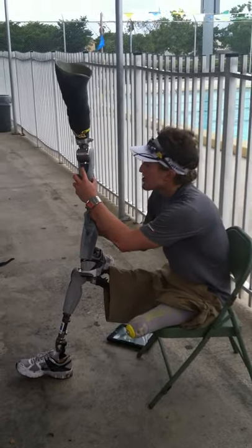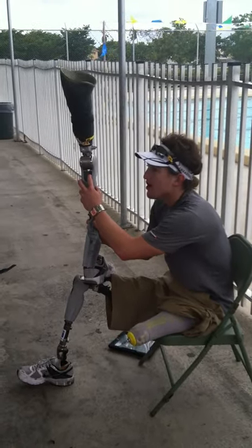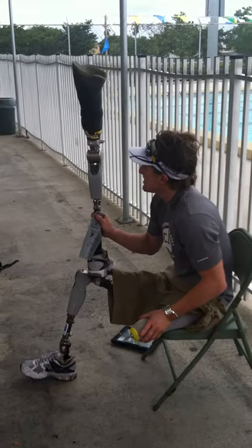You can see there's an on-off switch — that's where I plug it into the wall. I plug in maybe two or three times a week to get a charge.